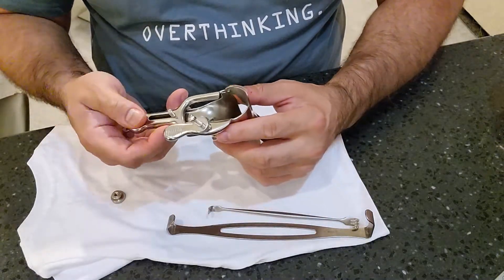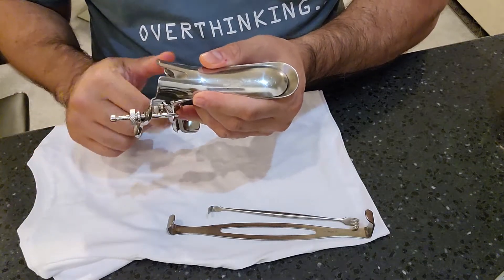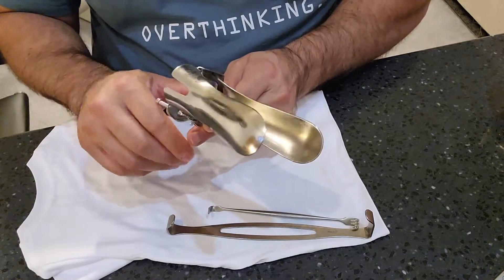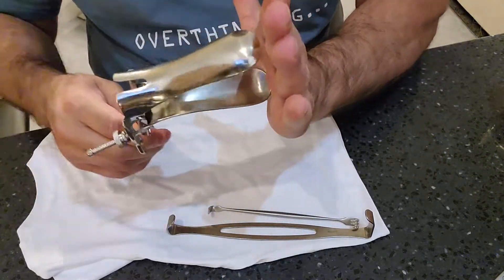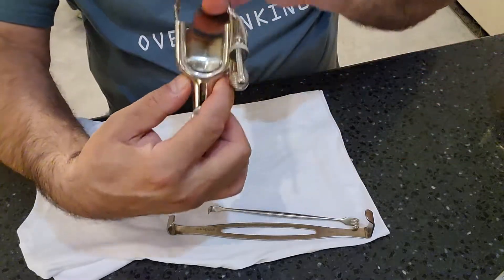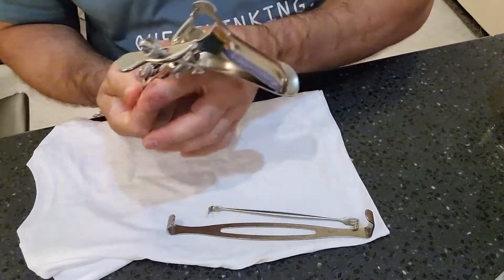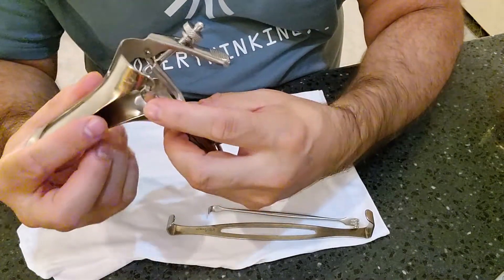Make sure the instrument is assembled correctly. The top portion of the blade should be shorter than the bottom portion — as the blade is opened and retracted fully, the blades angle downward and wrap around the cervix to give a complete visual of the cervical area. Confirm no sharp edges, no bio burden, all parts flow correctly and smoothly with no resistance, and the bill opens and closes smoothly.